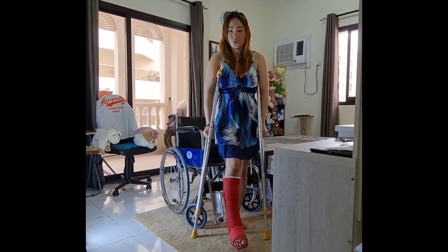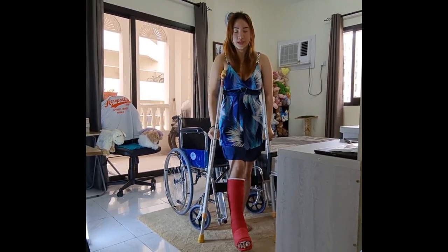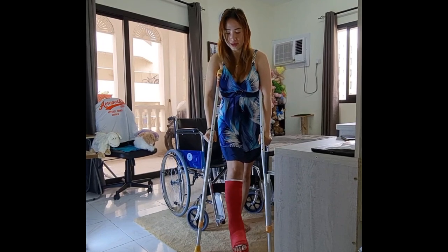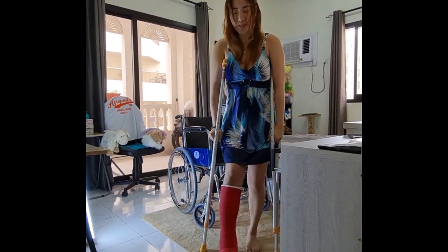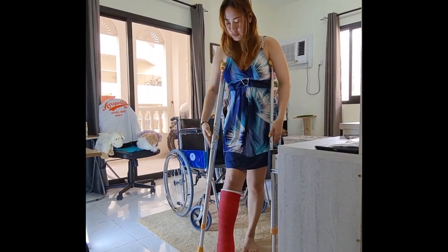If you're going to ambulate, the crutch and the weaker leg should move together, followed by the stronger one — like this. You should hop forward and all of your weight should go through that area.